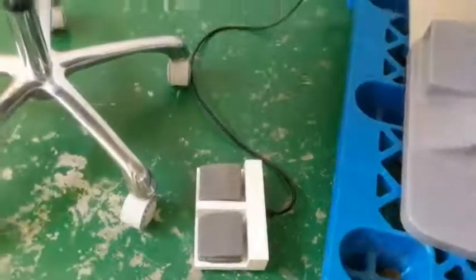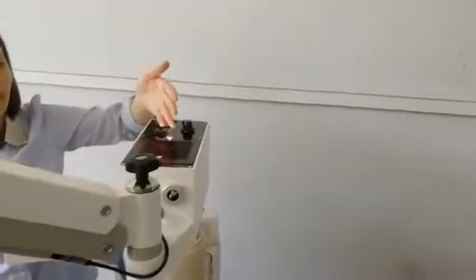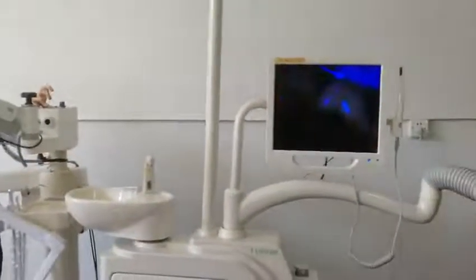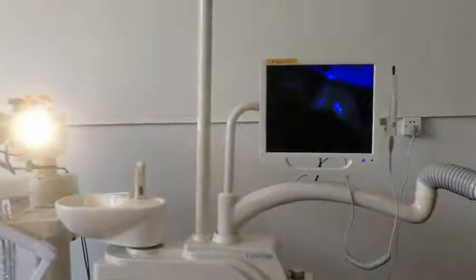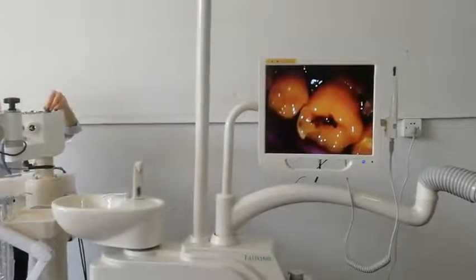It's unique in the market. The dentist can choose the left or right light. It is a five optic light. This one is for the left one and right one, and it is with a light filter.